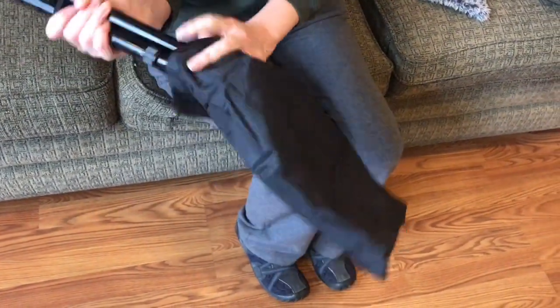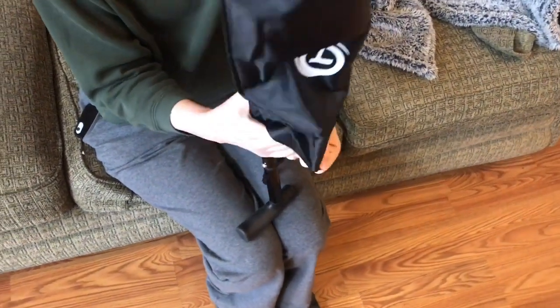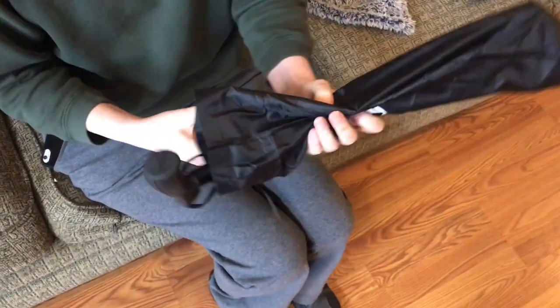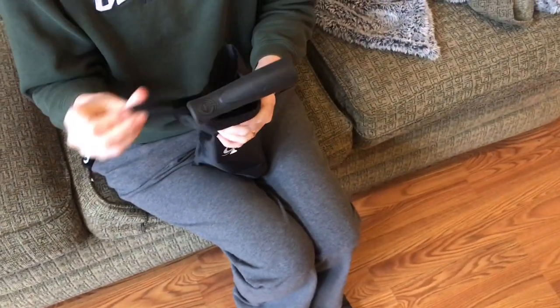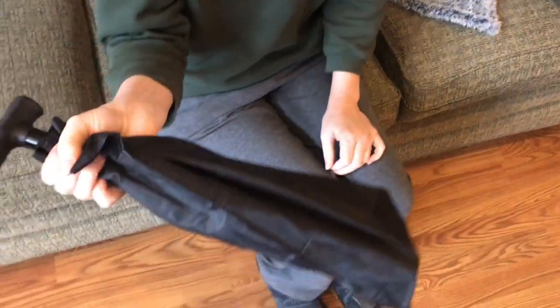Slide it down inside, and you can have this in a tote bag if you wanted, and pack it in the car so in the dark you can tap it on and see where you're going.